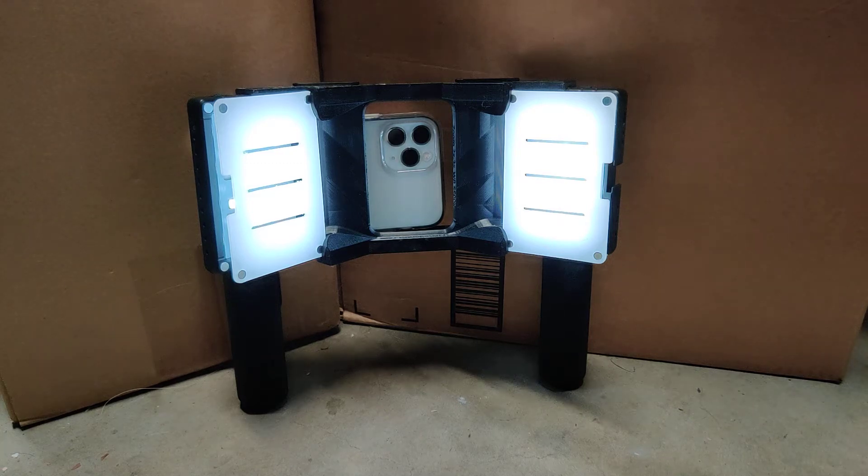Hi, this is Vu Li, and this is my phone rig — Vu's phone rig, a.k.a. the VPR-400 — my patent-pending design for smartphone dental photography. I'm very happy with the design. It took a lot of iterations. We're here in my garage because that's where I 3D print them. I still 3D print them, even in this early selling phase of the product.